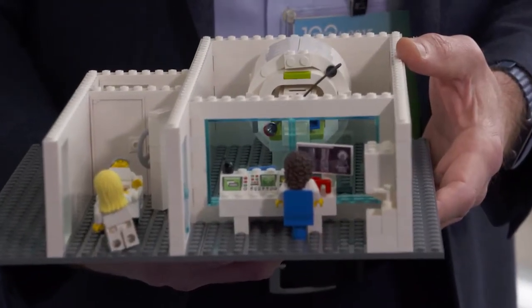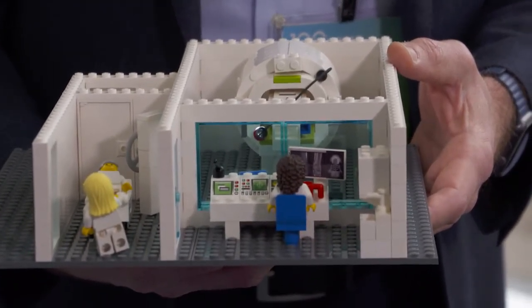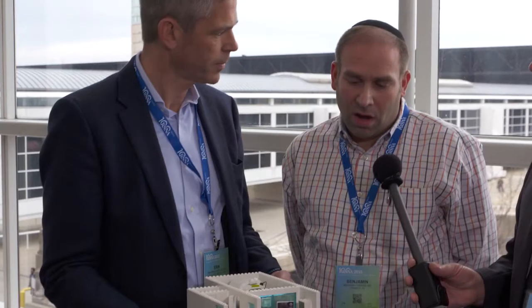Can you tell us a little bit about what exactly we're looking at and what it's supposed to do? So what we're looking at is a scale model of an MRI suite, which came about through a collaboration between myself and Eric. Our goal is to distribute both larger and smaller kits to children's hospitals to help those hospitals develop programs to ease the tension and anxiety of pediatric patients prior to MRI. An MRI scanner can be pretty intimidating to kids — it's intimidating to adults as well, but for kids in particular it can really be intimidating.